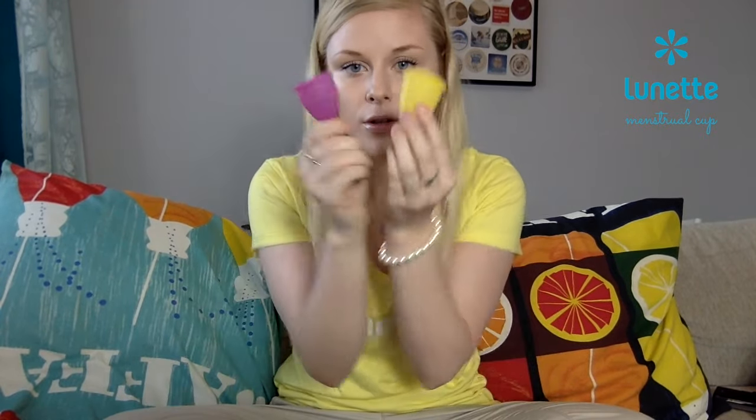Hi, it's Friday again and that means a video. Today I'm going to tell you about how to clean these. We have a lot of questions — do I have to boil it? How can I clean these holes? Now I'm going to tell you.